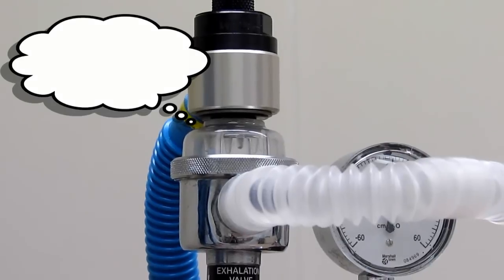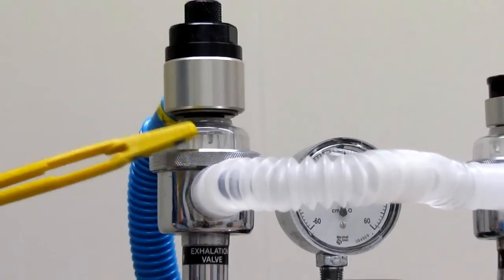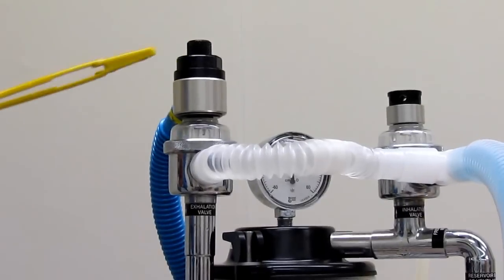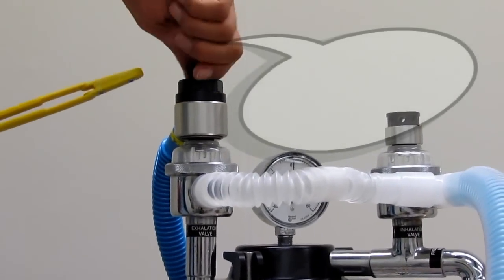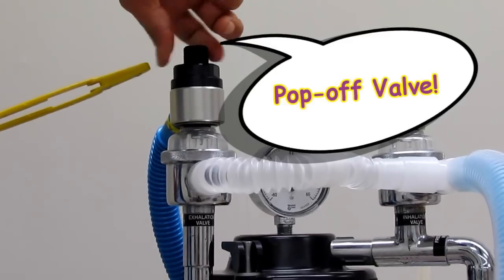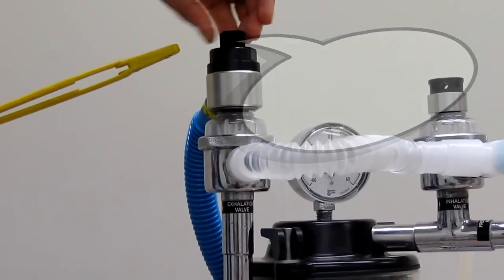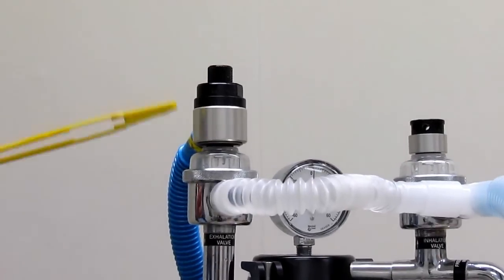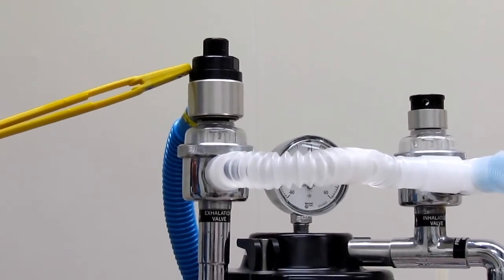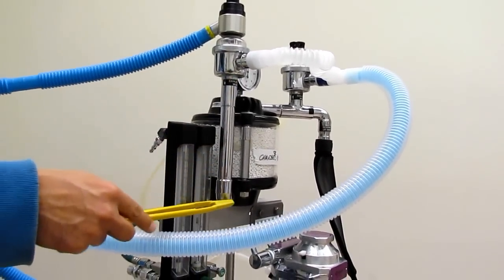Commonly associated with the unidirectional expiratory valve is a very important component located here called the positive pressure release valve. It's also called the pop-off valve. It has a dial which can be opened and closed and allows pressure to either be released or build up in the system. It's very important to have the pop-off valve open during use.